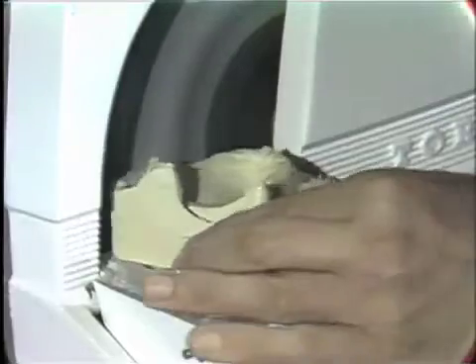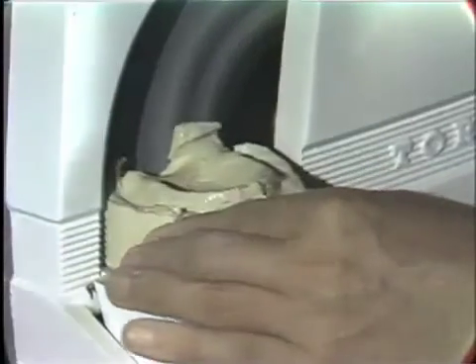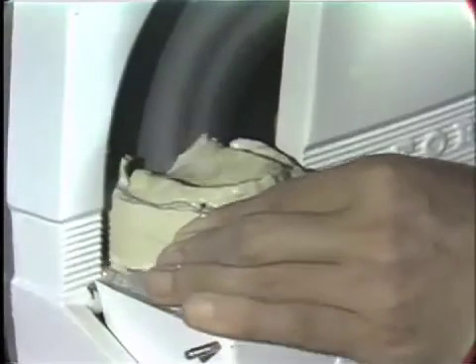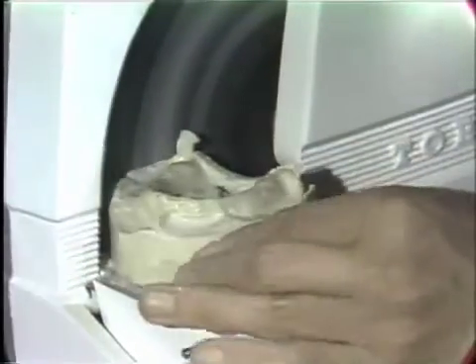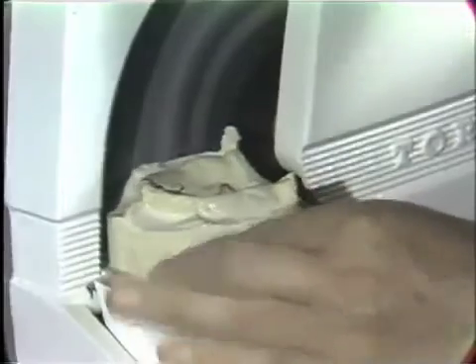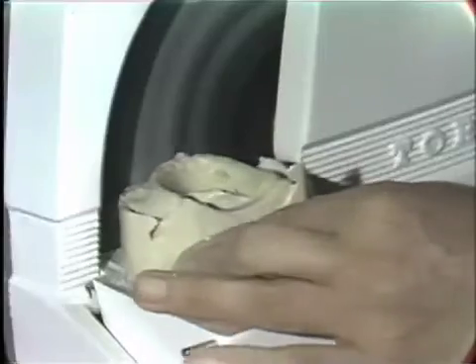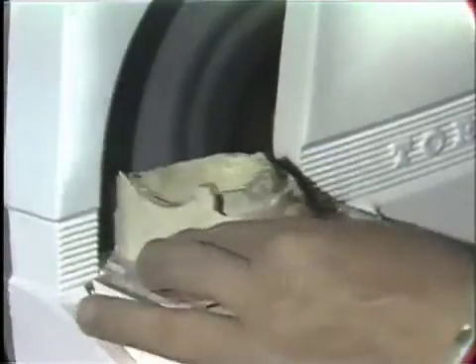Reducing the stone back to your impression across the posterior border, coming around the buccal flange, the labial flange, again the labial flange, and the buccal flange.